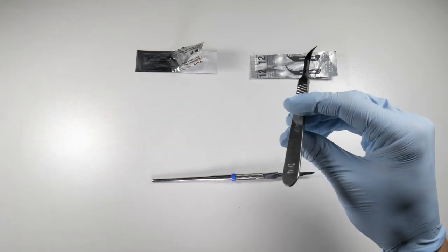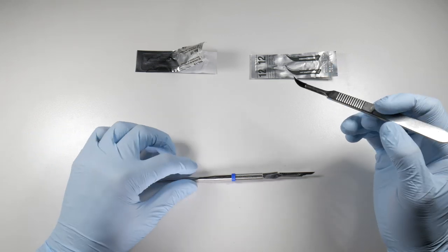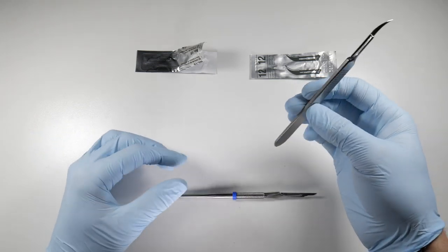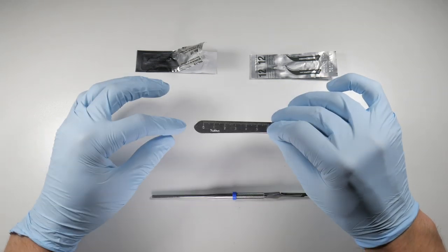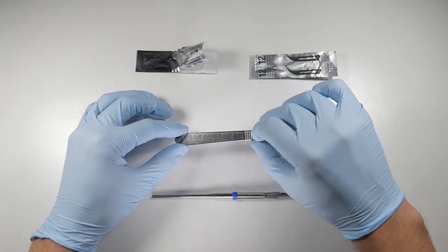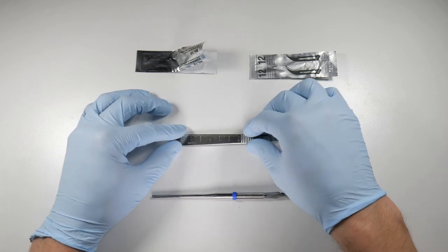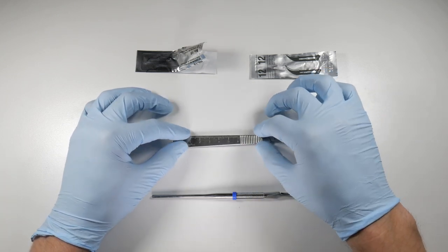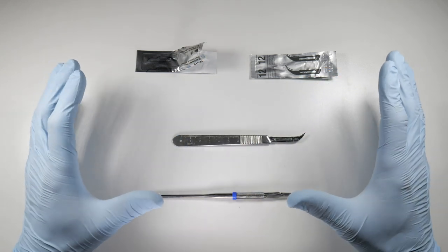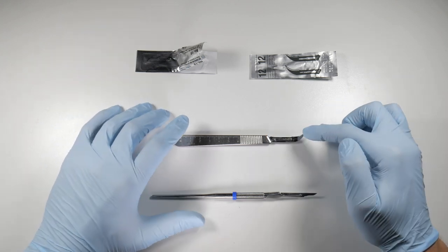For that reason I'd suggest that you try this out. The number three of course is probably the most recognized, most used scalpel. It does have these numbers on it which is kind of nice if you're doing biopsies or things and you want to get a measurement, which we don't have on this round one here. But great tool to try, I suggest you give it a shot.